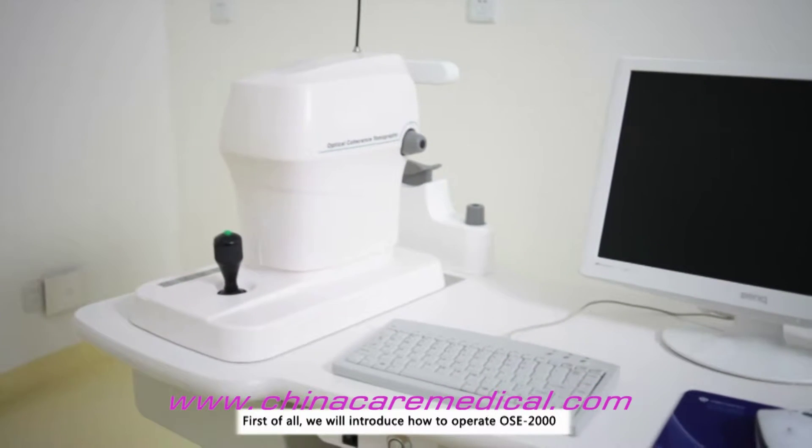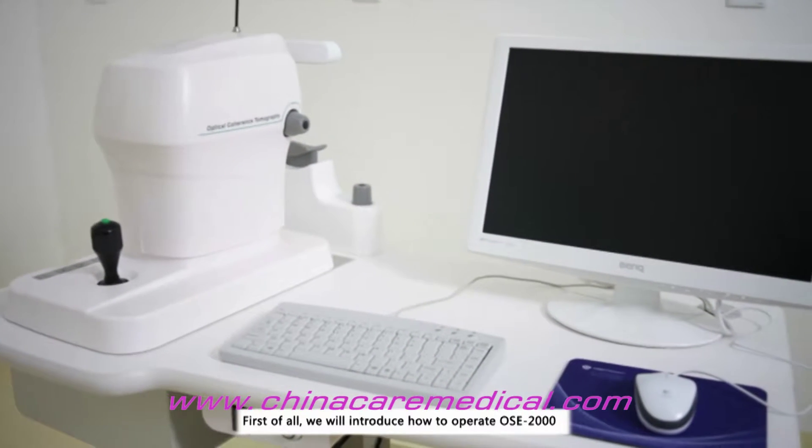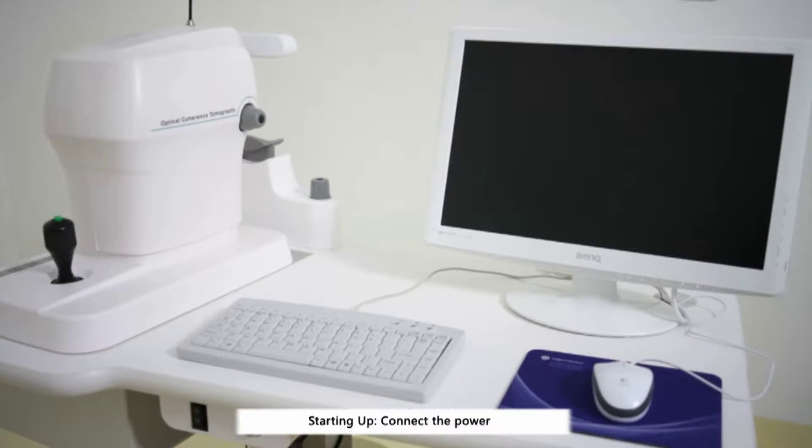First of all, we will introduce how to operate OSE-2000. Starting up.